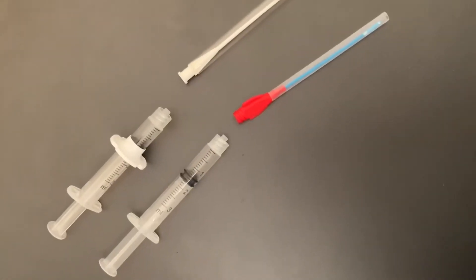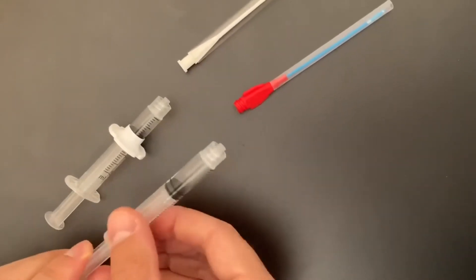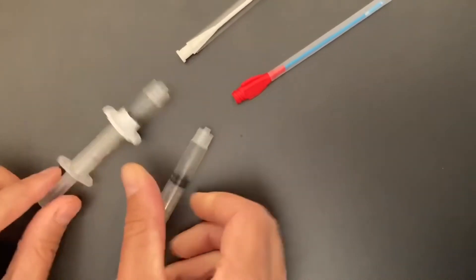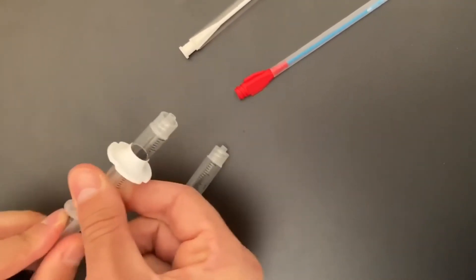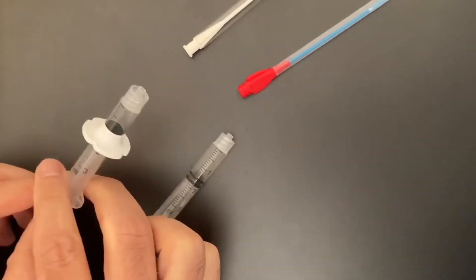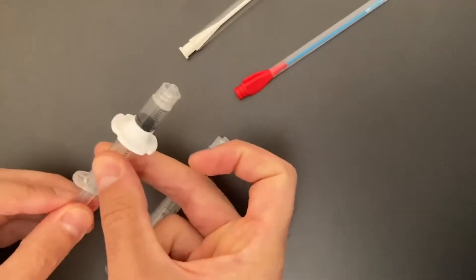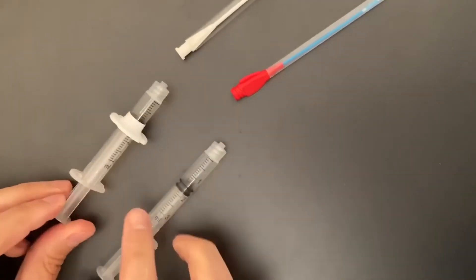The syringes are also slightly different. Our syringe is designed for 1.5 ml of inflation with this backstop here while theirs is designed for 1 ml of inflation. Theirs also has this gripping feature which we did not seek to replicate because frankly no one has yet told me that it's very useful.